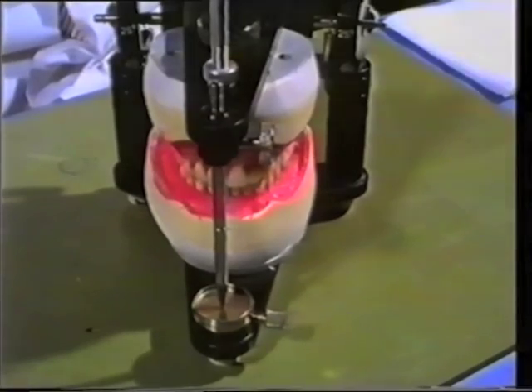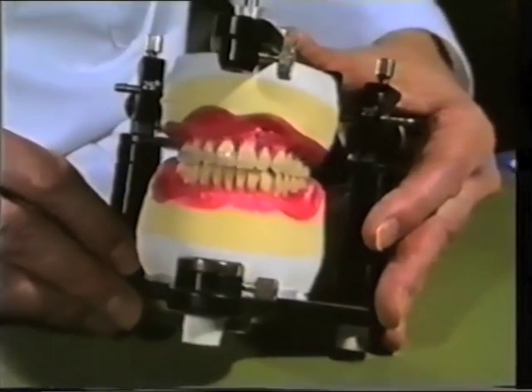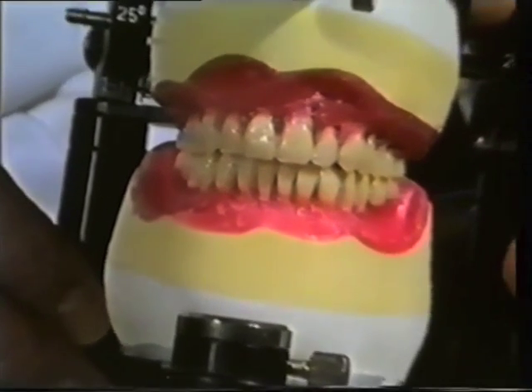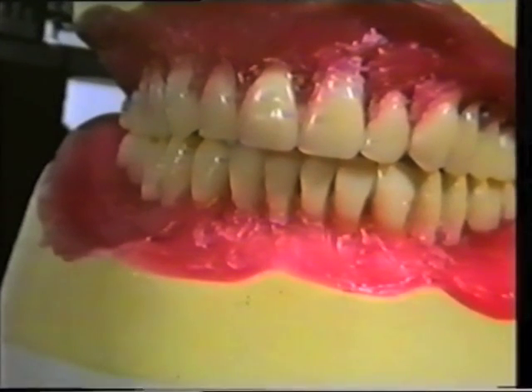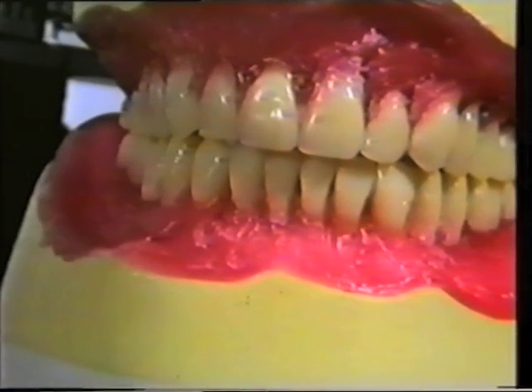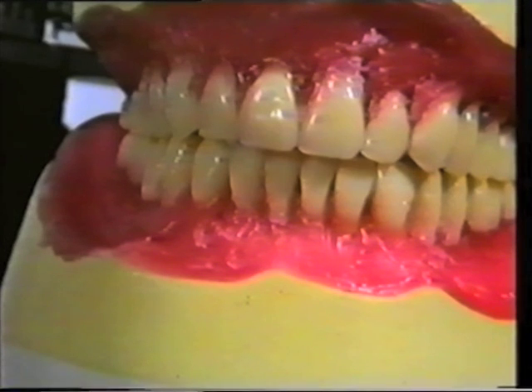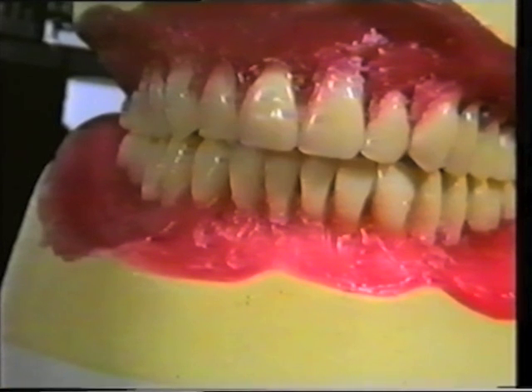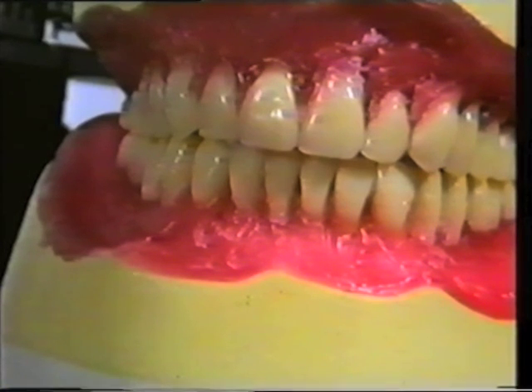The upper anterior tooth position was dictated by the anterior prescription of the upper occlusal rim. In certain circumstances, the clinician may indicate the desired positioning of the posterior teeth by adjusting the occlusal rims.